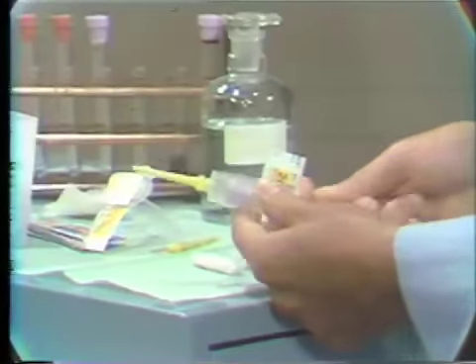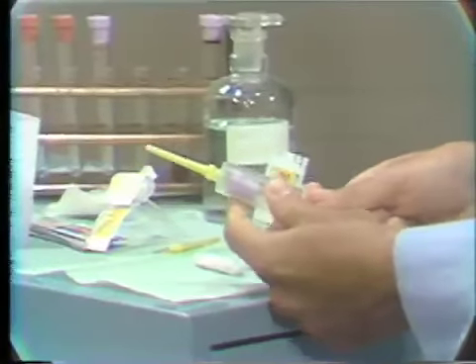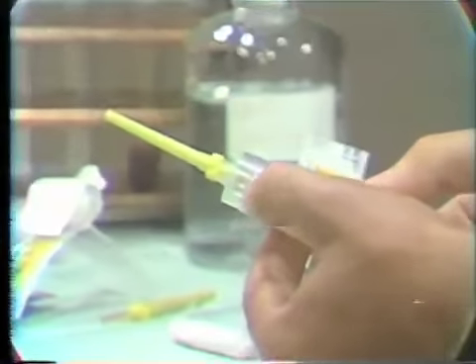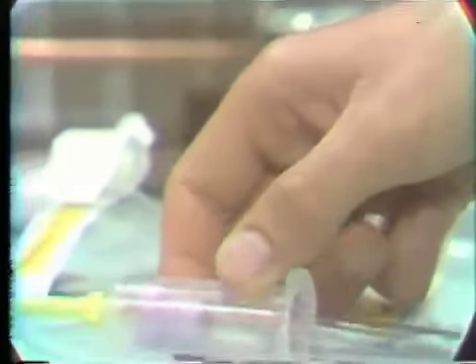By placing it firmly, we must make a small puncture into the rubber and bring it up to this line. I think you can see the line right there on the Vacutainer holder. That holds the needle in place. With the Vacutainer and the Vacutainer needle all set, we are ready to go to our patient.